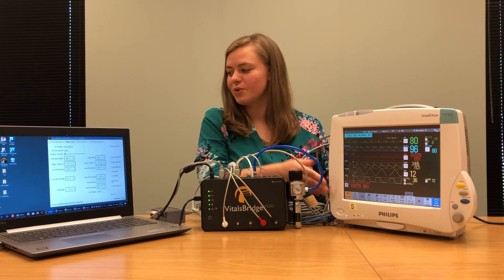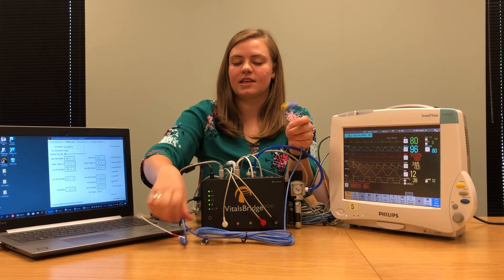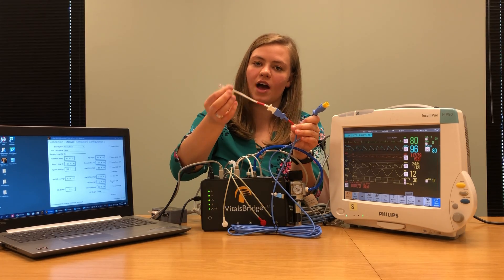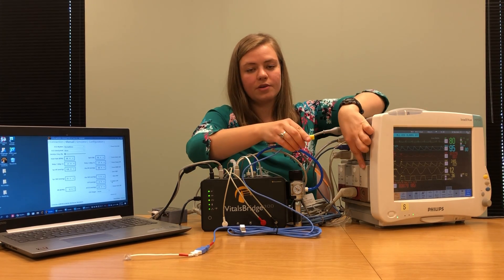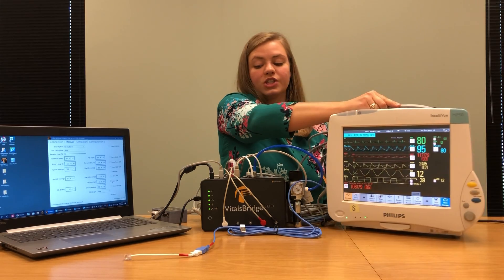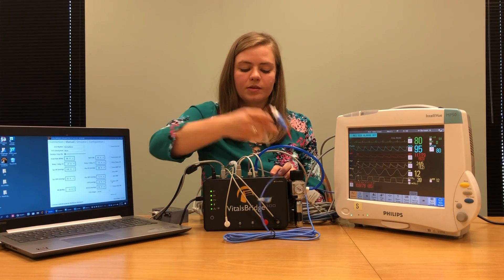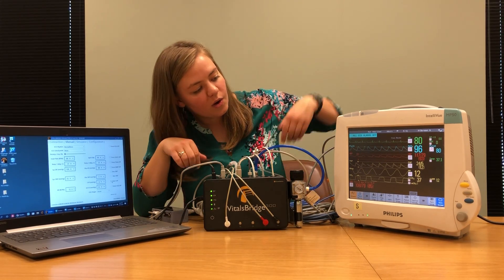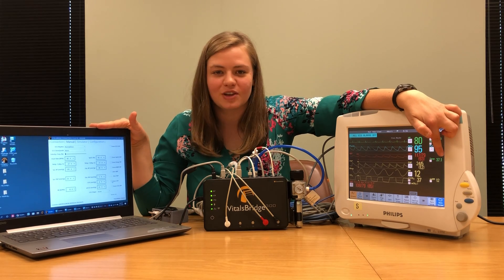While we wait for that to go through, we're going to connect our last cable, which is our temperature reading cable. It should have been included with your VitalsBridge unit — on one end it connects to your patient monitor, and on the other end it connects to your VitalsBridge 300. Find where it says TEMP on the side of your patient monitor and plug that in. Then take the other end and plug it into your VitalsBridge where it says T1. The VitalsBridge 300 supports two temperature readings, so if you'd like to add a second one, plug that into T2. Once plugged in, you should see a temperature reading on your patient monitor that matches what you have in your VitalsBridge connector software.